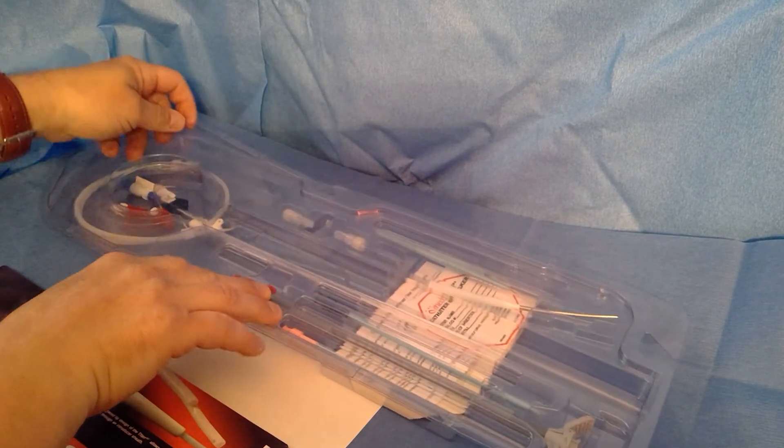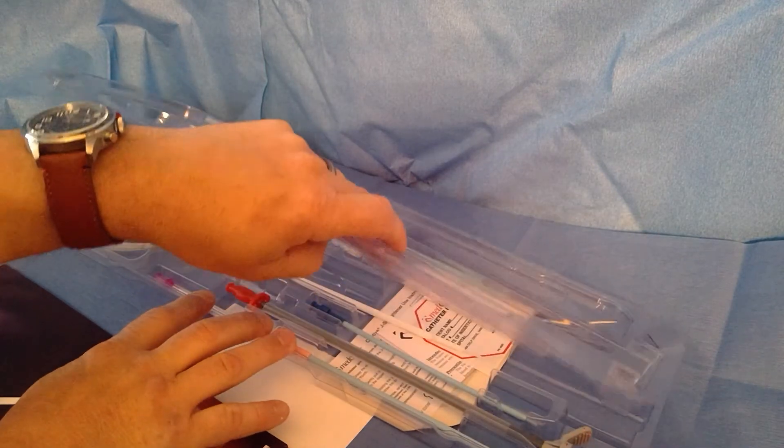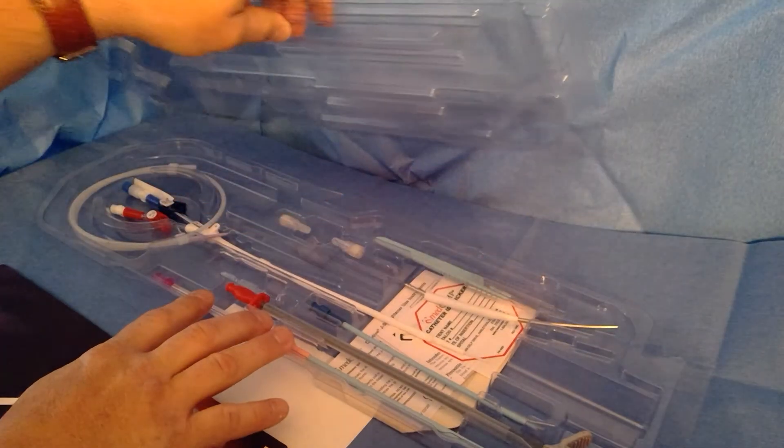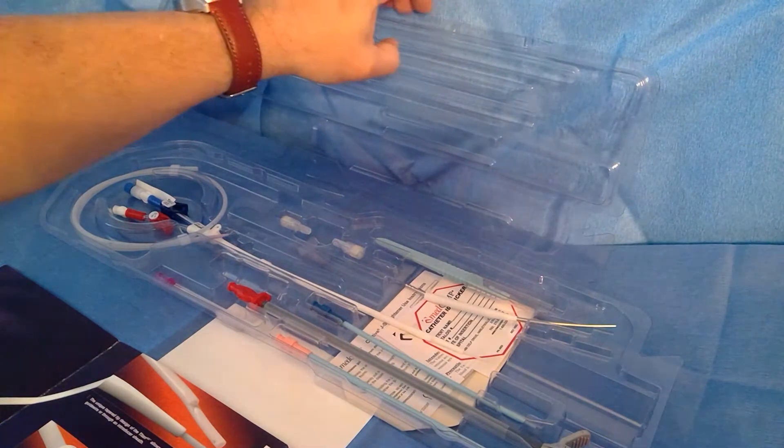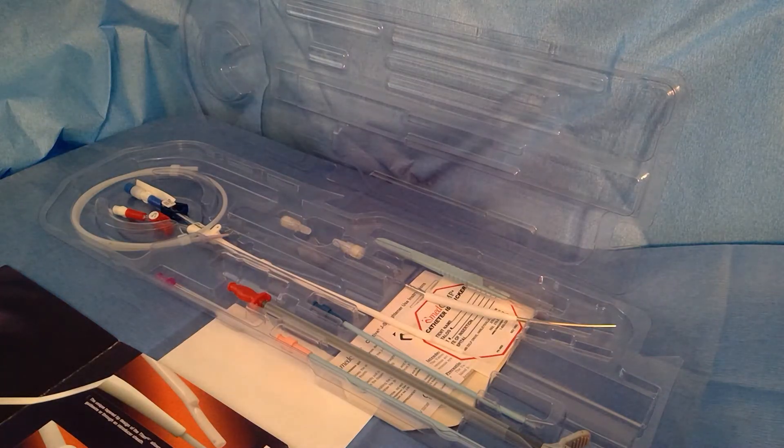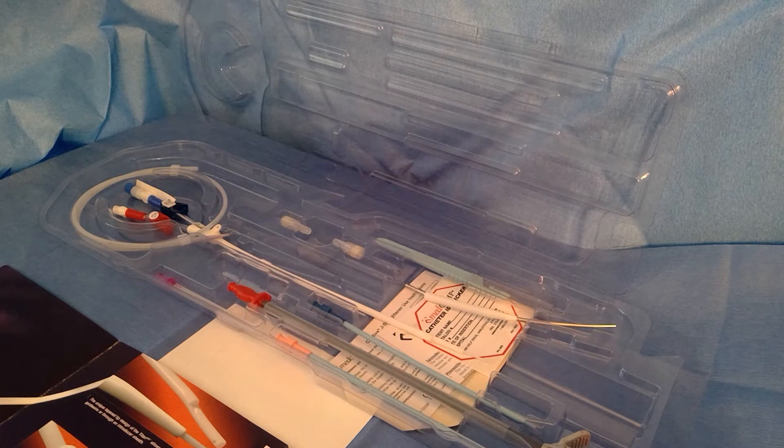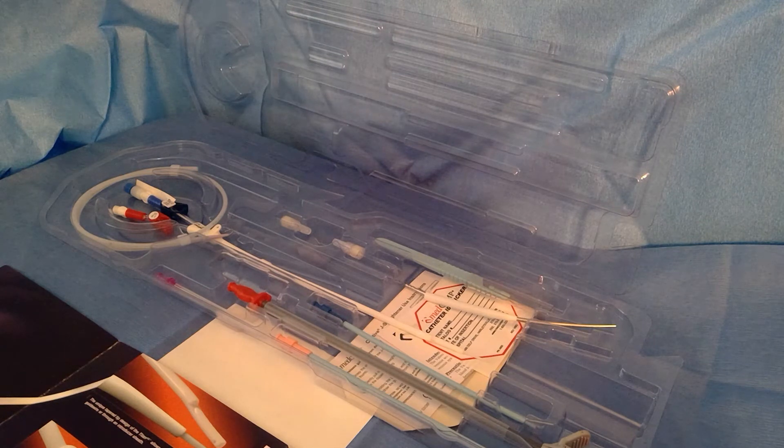Luckily Medcomp right now is doing well with its inventory. We're trying to keep up with the increased demand across the country, actually globally. We're a global company, so you might run out of your other catheters from companies such as BARD or AngioDynamics. If you do and you get a hold of some Medcomp products, I wanted to make sure that you're familiar with them. It's very important to be familiar with the tools you're using in the lab.